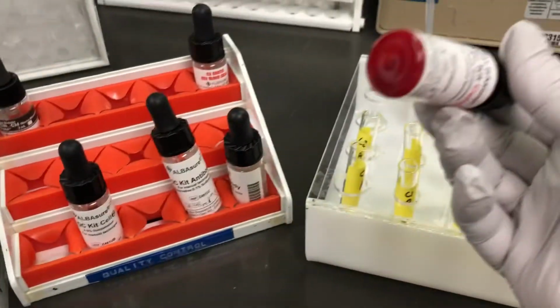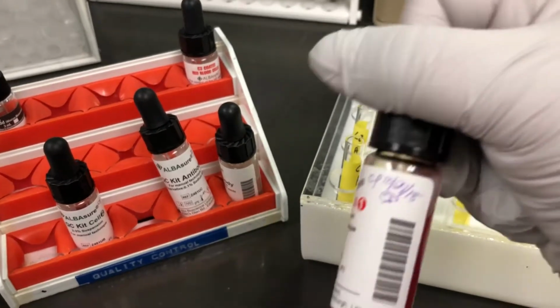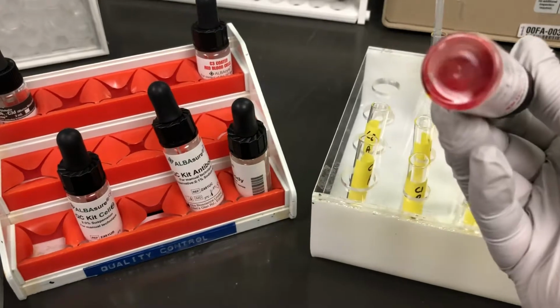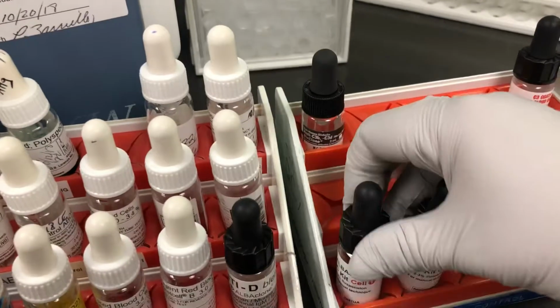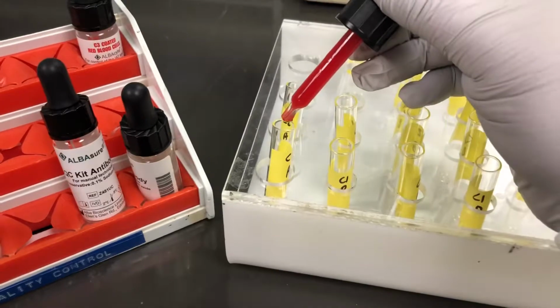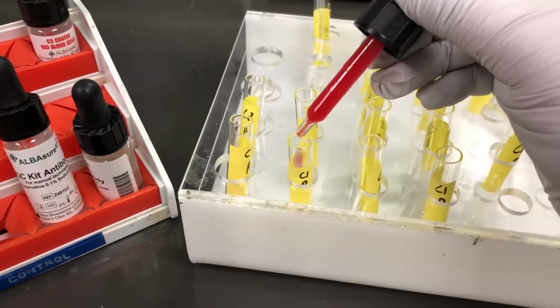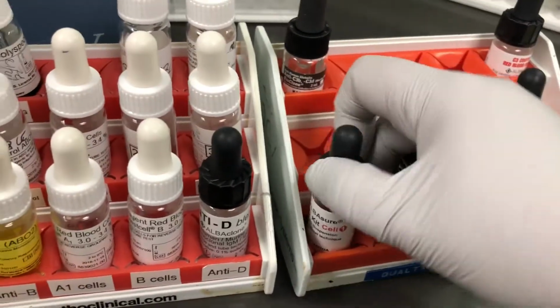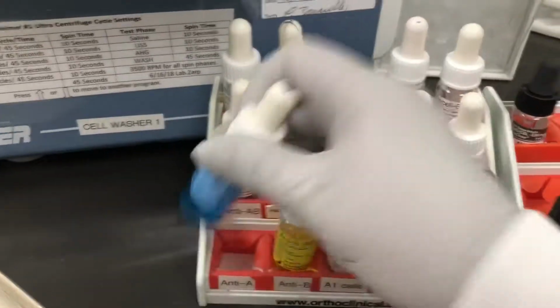So when we go and set it up, we're going to make sure we mix. Always make sure to open and initial the bottles. That's important. CAP will ding you for that. And you want to mix well and open up. I'm working with one hand here, so this is our cell 1. So I'm going to take the cell 1 and do 1 drop into each of the cell 1 tubes. And you don't want to touch it because, especially around winter time, when it starts getting colder and you're using the heat, it'll really create a problem.